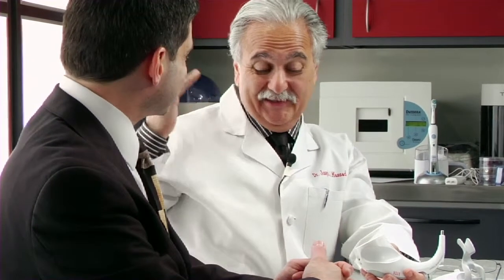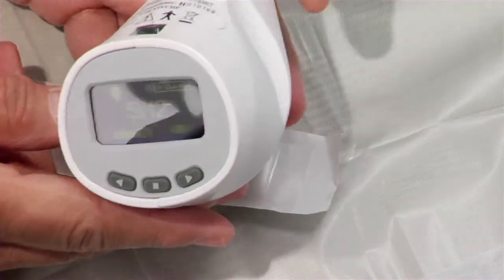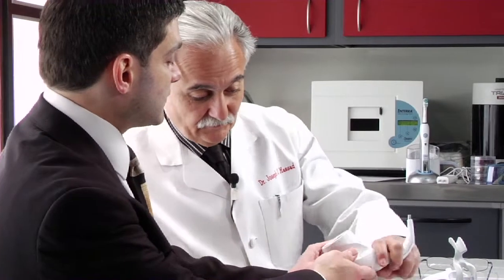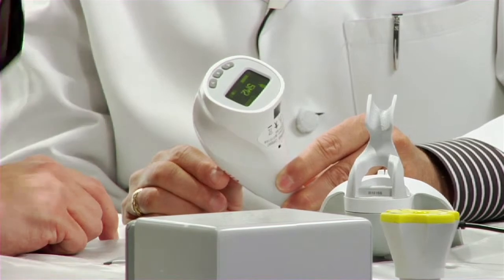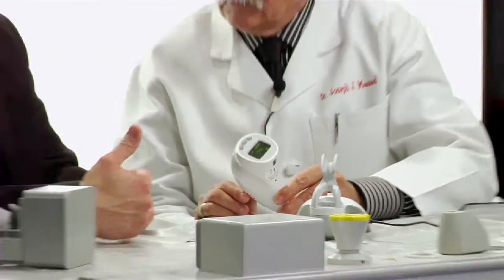The way I look at this: I let the patient help select the shade. If they want a snow-white tooth, it's their mouth. We can verify what they chose and even take a screen capture to say 'Mr. Smith, this is what you selected and this is what I'm verifying.' There's also a USB port — you connect it to your computer and with the LabRx software that comes with the unit, the shade is automatically uploaded, creating a lab script personalized with your name and address, automatically populated with the shade. You can also import a photo and print it or email it to your technician.